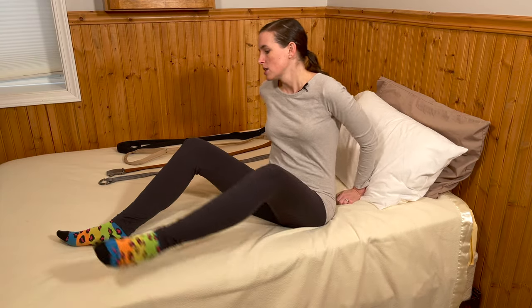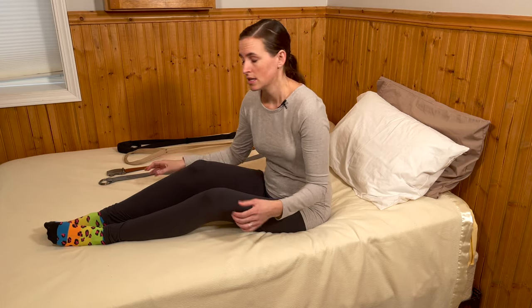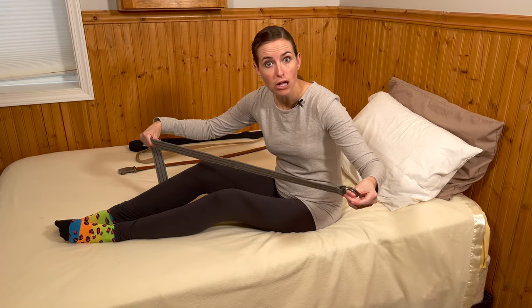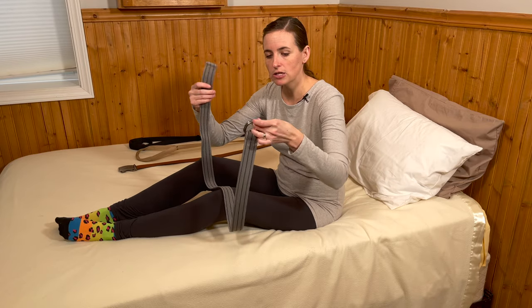That's an awesome option if you don't have any tools available and simply want to use your strong leg to assist a weaker or injured leg. The next most common way we set up leg lifters for clients is with a belt — whether that's a canvas belt like this or a gait belt, perhaps, if you have one available to you. These are really common.